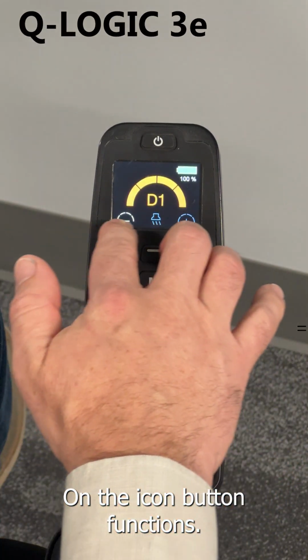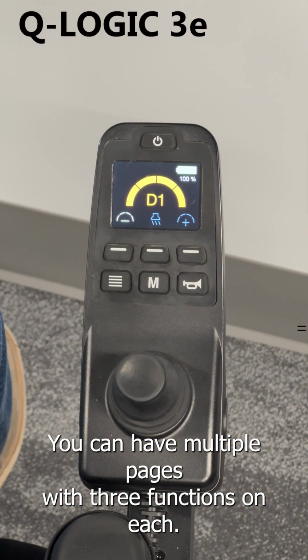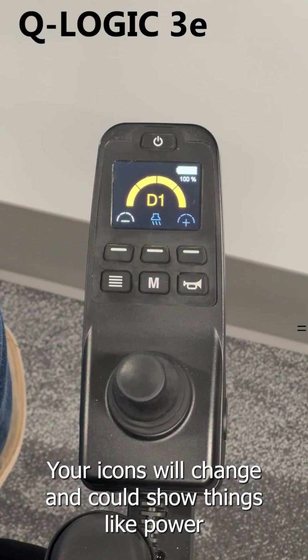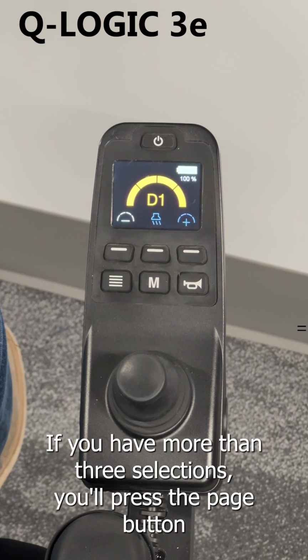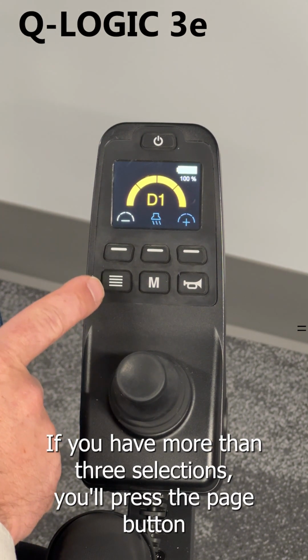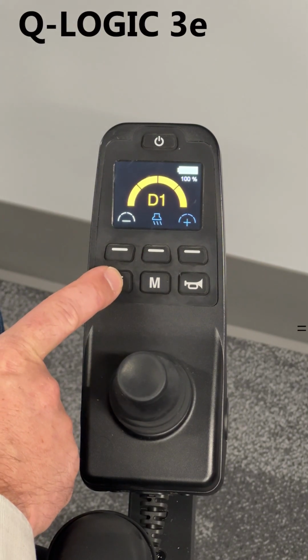On the icon button functions, you can have multiple pages with 3 functions on each. Your icons will change and could show things like power seating functions, speed up and down, settings, and lights. If you have more than 3 selections, you will press the page button indicated with the 4 horizontal lines.